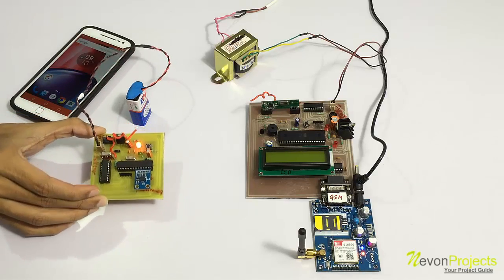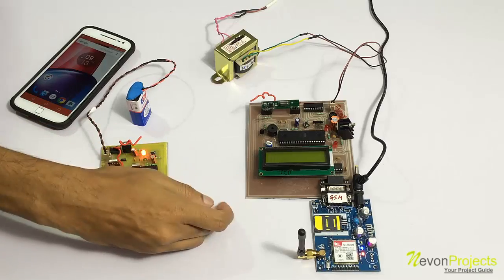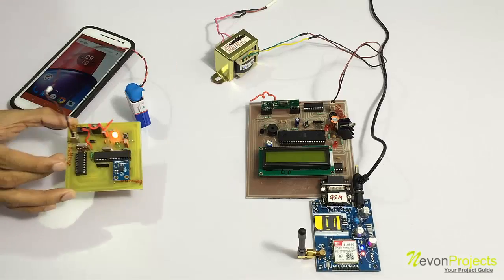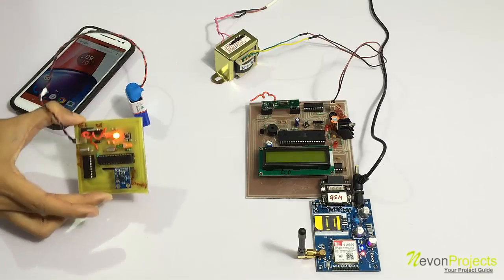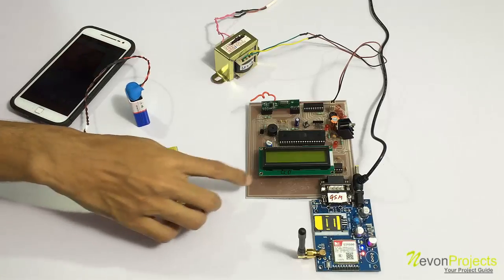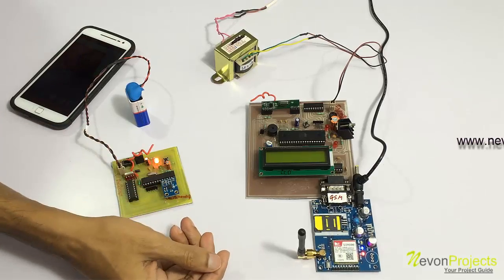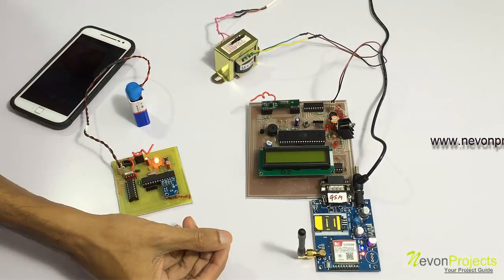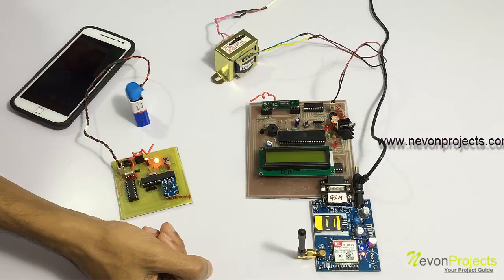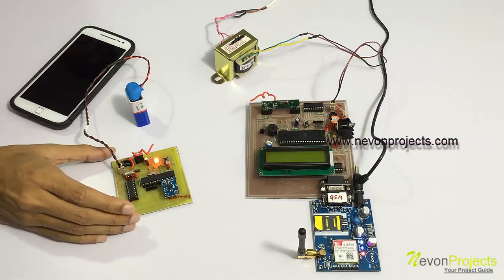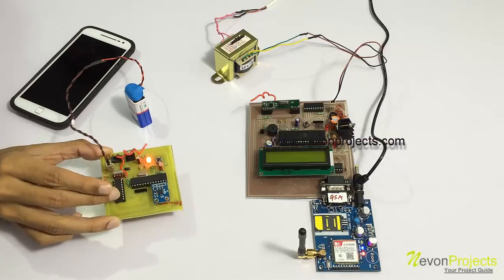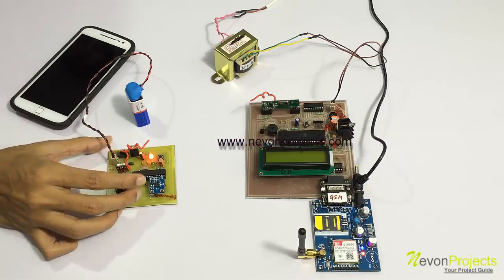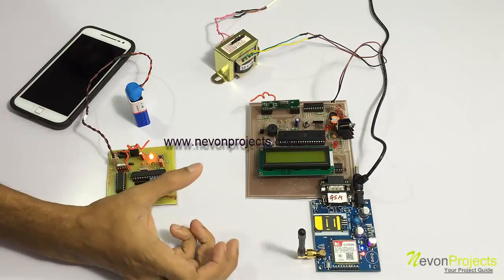This unit is to be mounted on the patient's hand, and this is the controller unit. If the patient is in the bedroom, this will be on the patient's hand and this would be in the kitchen or wherever the responsible person is.